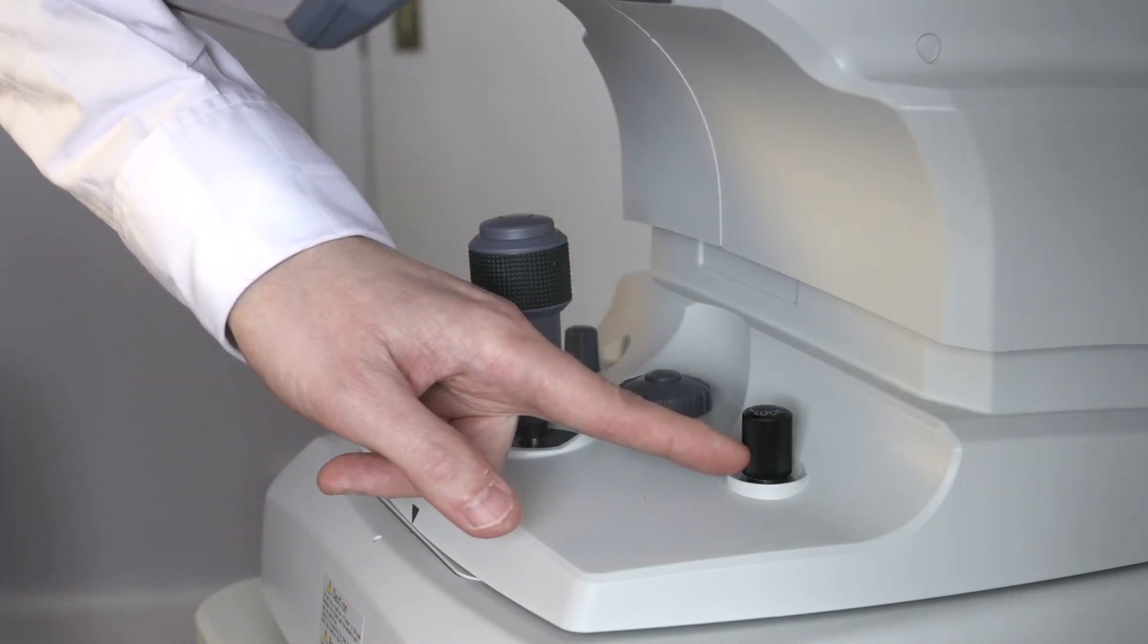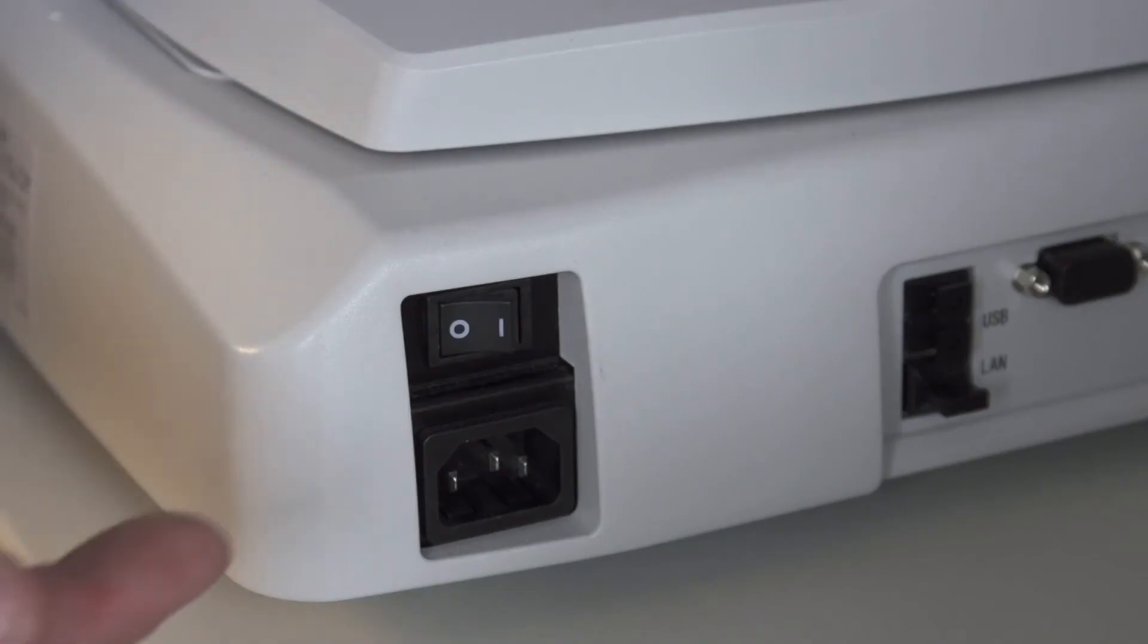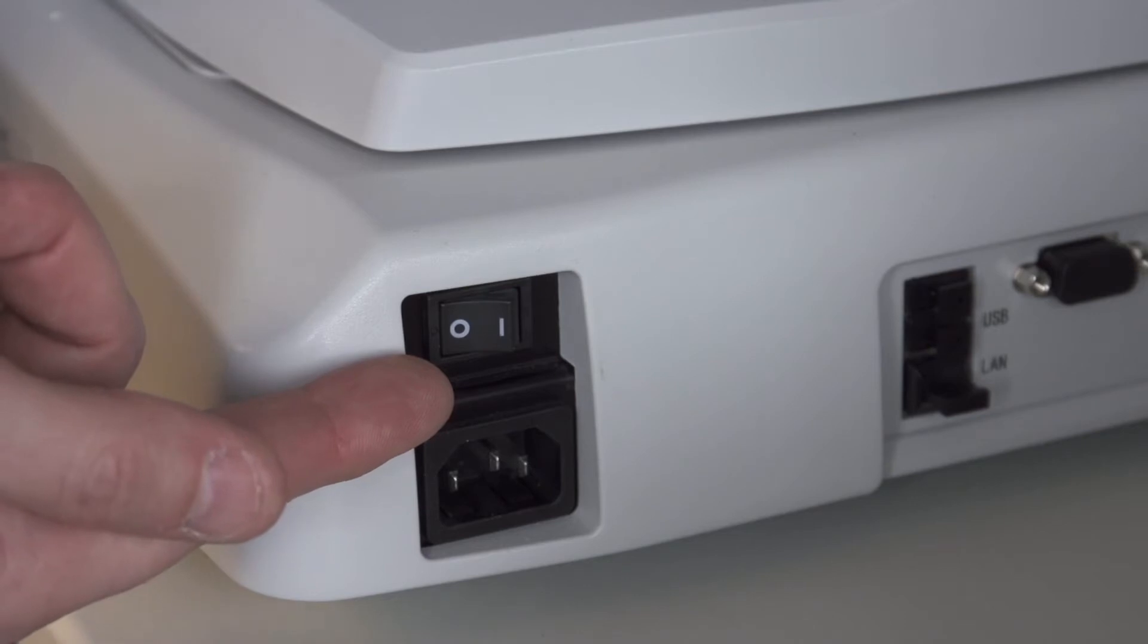Over here is the locking button just to secure it when the device is not in use. On this side of the device is the main on-off switch.